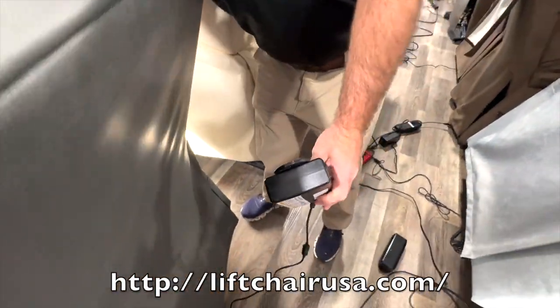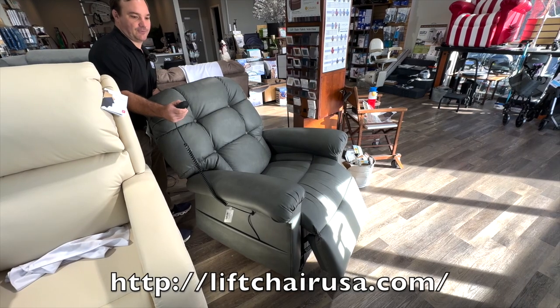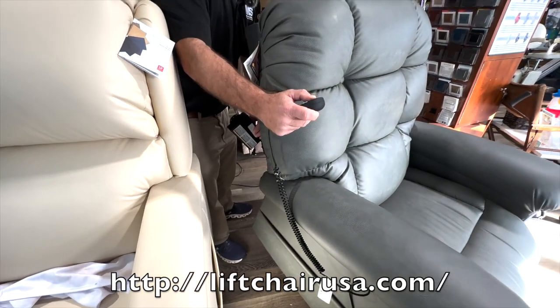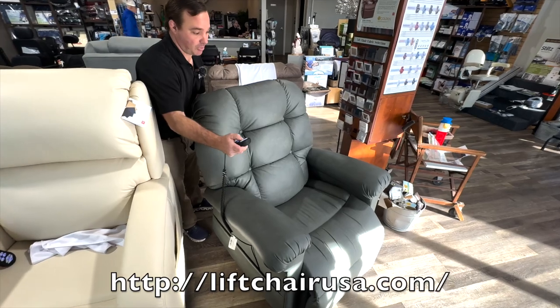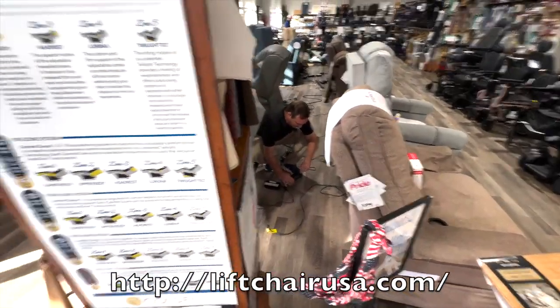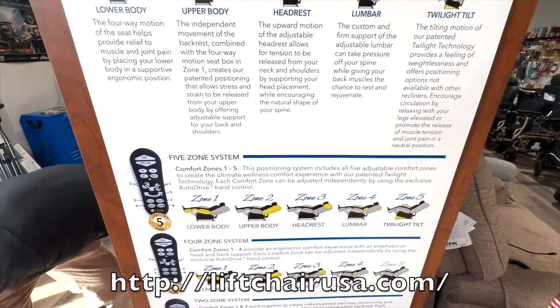Watch this — I don't know how many times I can do this but I can do this for a long, long time. I guarantee you if you have this battery backup system, I can keep pressing this and it's operating the chair — it's all through here. I would imagine your chair would operate for at least a day, if not longer, depending on how many times you move it. If you're in a place where snowstorms cut your power for days, if you invest in a couple of these and keep them charged, you'll have it for two or three days or longer.